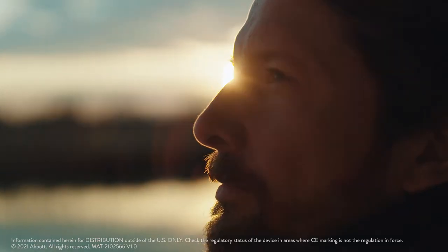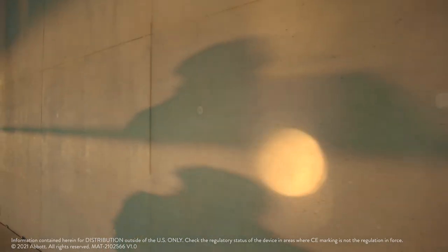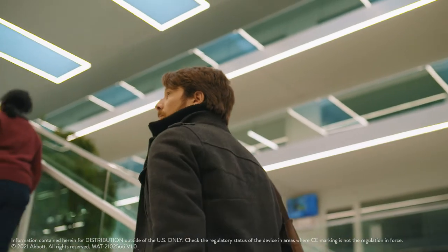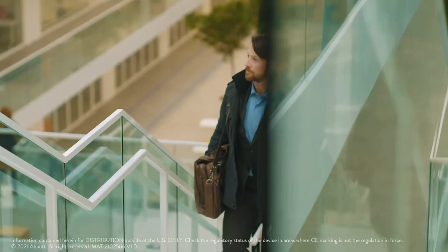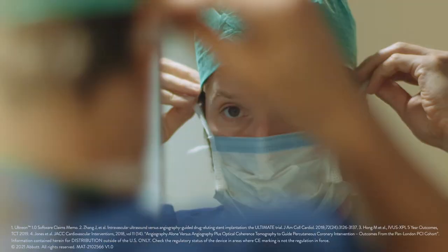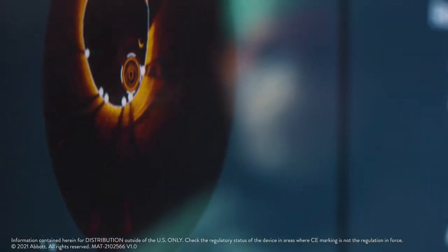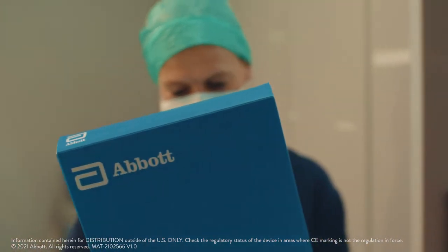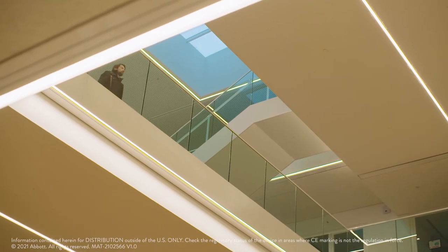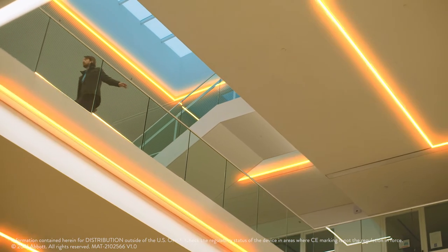Imagine a world with the next generation imaging platform. One with artificial intelligence to help inform and guide physicians during PCI procedures, that reduces ambiguities and gives better insight to optimize patient outcomes through the power of automation and an improved workflow. All within a streamlined and intuitive OCT platform that lets you see imaging in a whole new light.